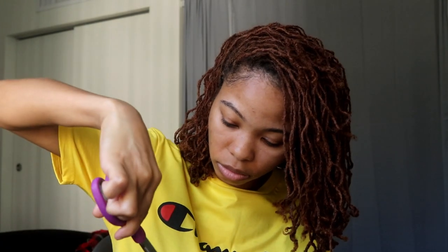So now I'm going to go ahead and unbox her stethoscopes. This one is her stethoscope — the packaging is super cute. I'm going to go ahead and open this really quickly. My camera is like focusing in and out, sorry about that.